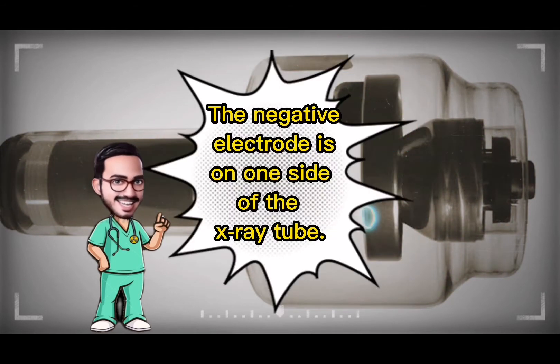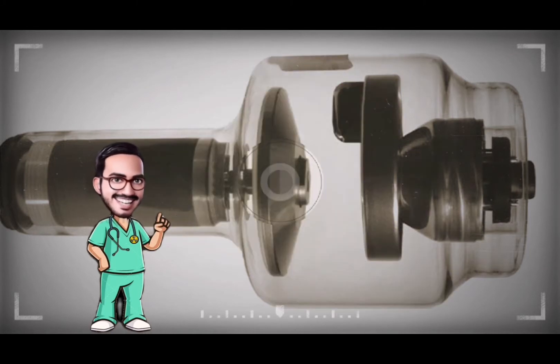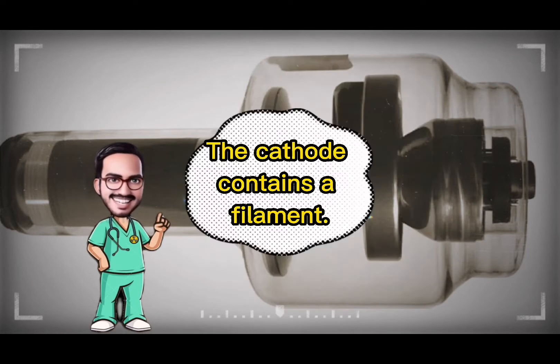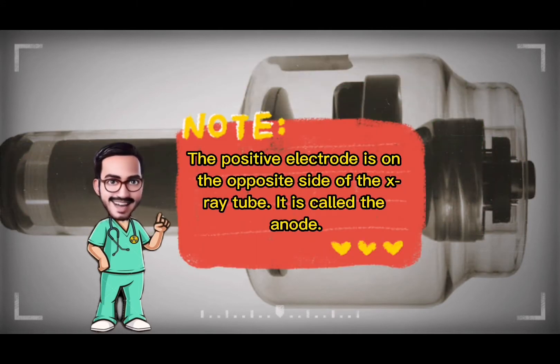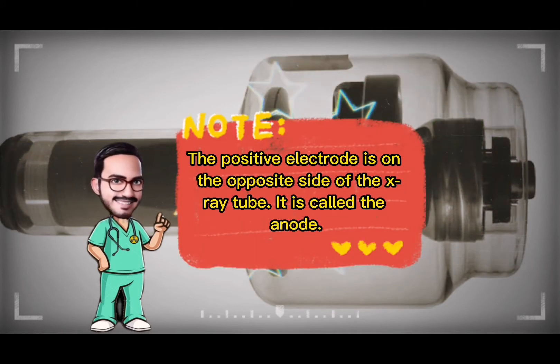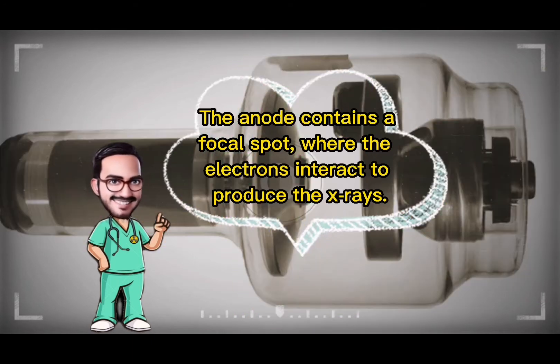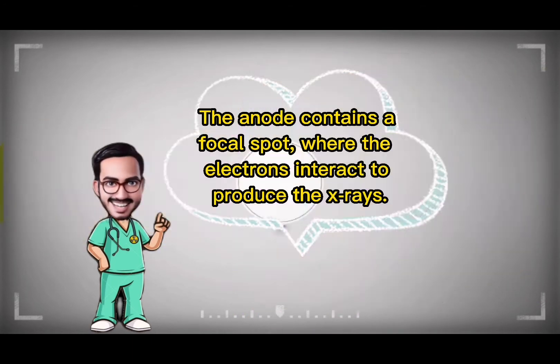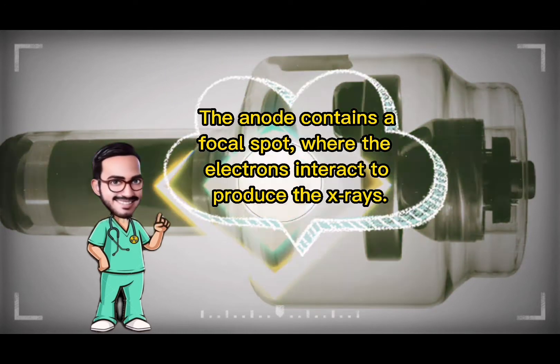The negative electrode is on one side of the x-ray tube — it is called the cathode. The cathode contains a filament. The positive electrode is on the opposite side of the x-ray tube — it is called the anode. The anode contains a focal spot, where the electrons interact to produce the x-rays.